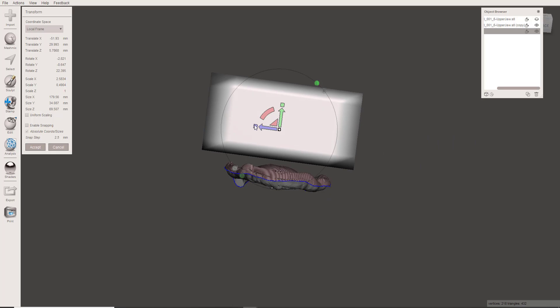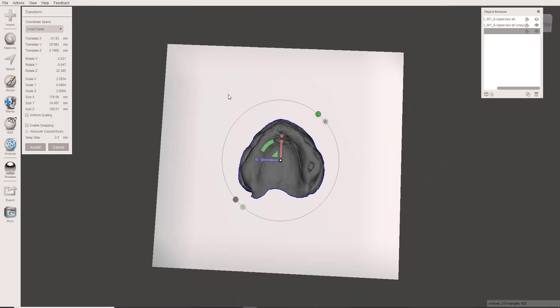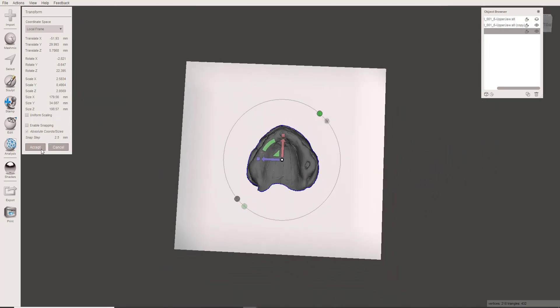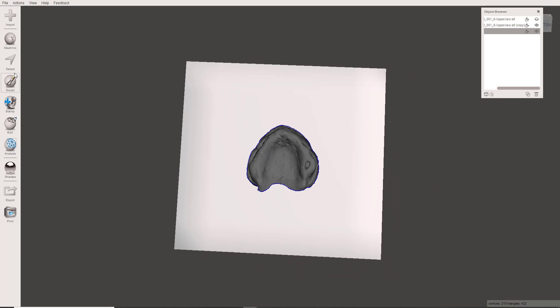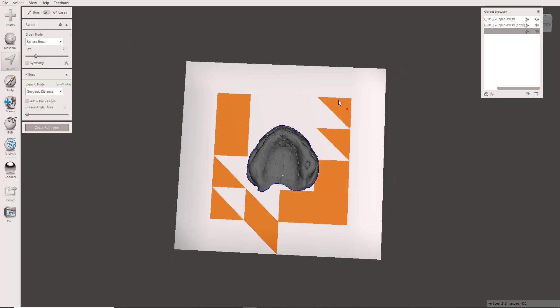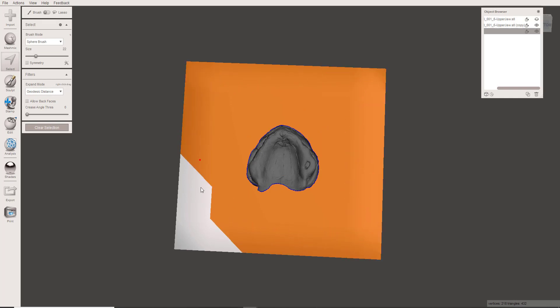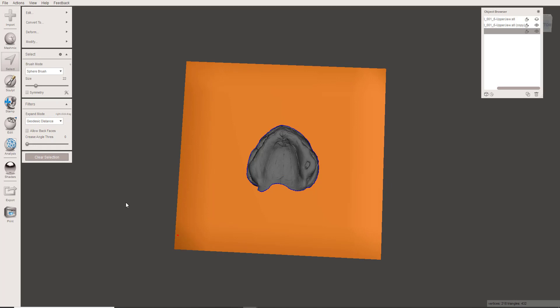When you look from the front, way out this way. Now I'll accept that. Now, one thing I'm going to point out real quickly, I'm using the Select tool, and do you see how non-dense this mesh is? That's going to create some problems that I won't go into. Just take my word for it that it will.